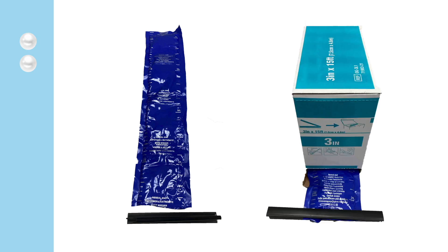There are a few pearls of wisdom I've learned over the years working with this product. The first pearl is to be sure to have all the equipment ready before you add water and harden the splint — we'll cover all the materials you'll need later in this chapter. The second pearl is that after you've cut off the length you need, be sure to seal the rest of the container to avoid having hardened splint materials for the next time you need it.